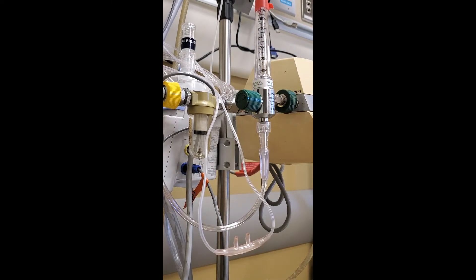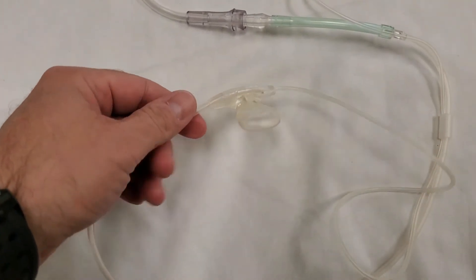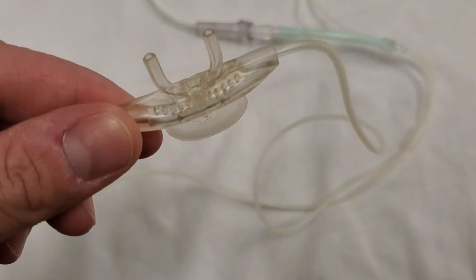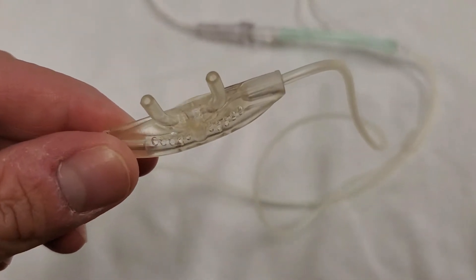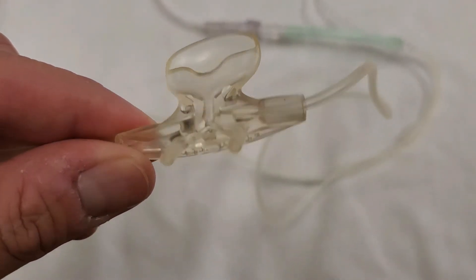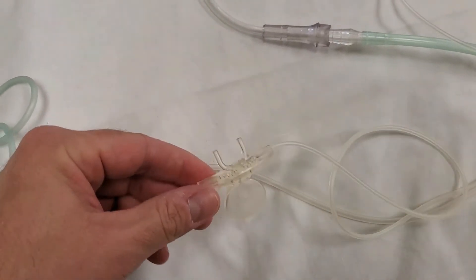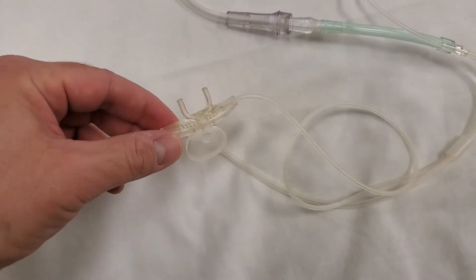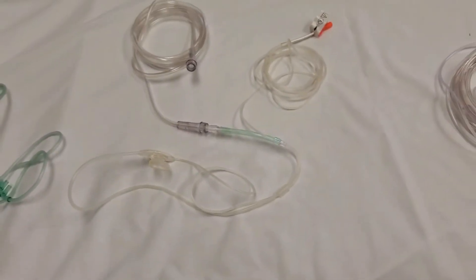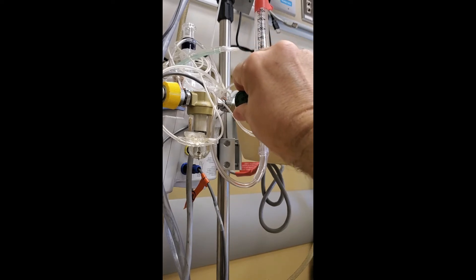Now that brings us to the end-tidal nasal cannula. Just as a review: the end-tidal cannula doesn't flow oxygen out of the prongs or out of the little oral scoop. It actually flows oxygen out of these little pores which are above the nasal prongs. The prongs and the little scoop are strictly for sampling.